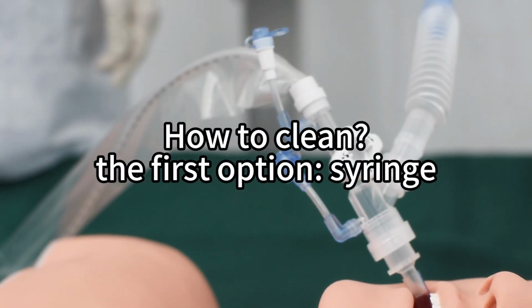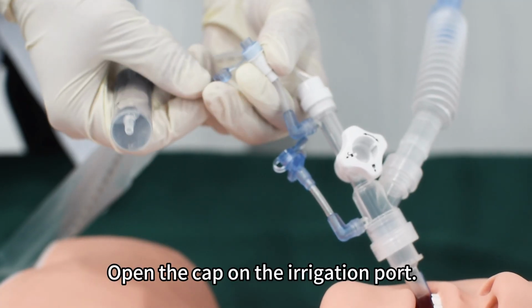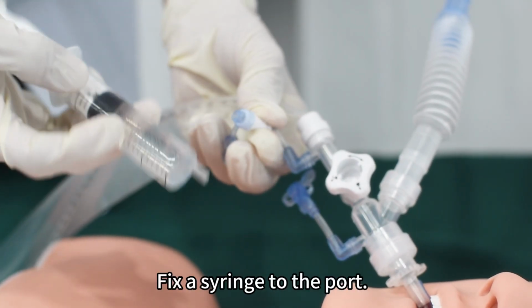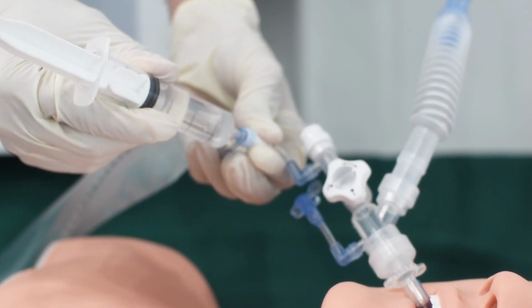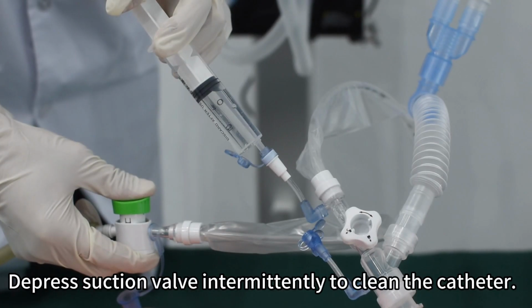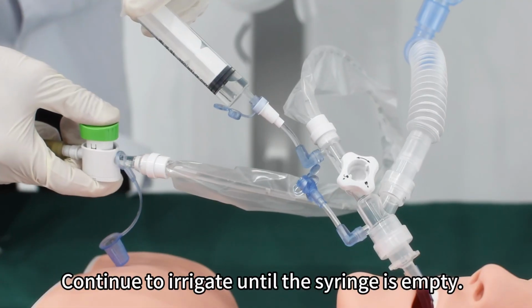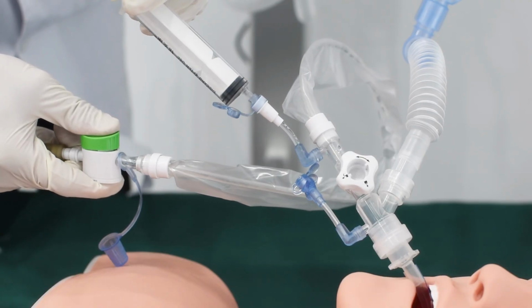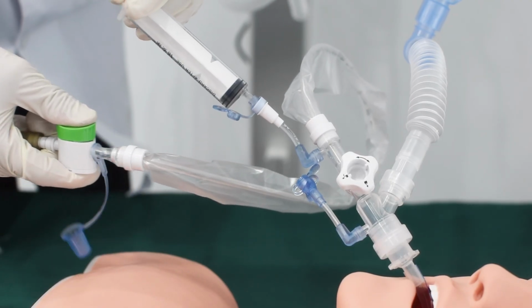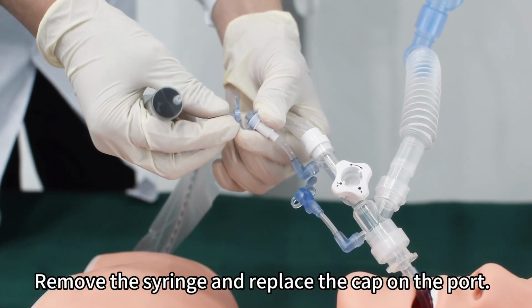How to clean? The first option, syringe. Open the cap on the irrigation port. Fix a syringe to the port. Depress the suction valve intermittently to clean the catheter. Continue to irrigate until the syringe is empty. Remove the syringe and replace the cap on the port.